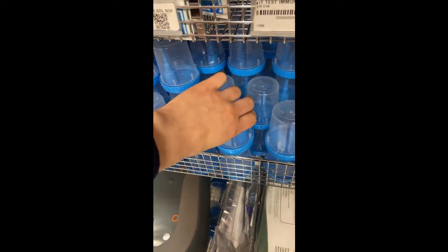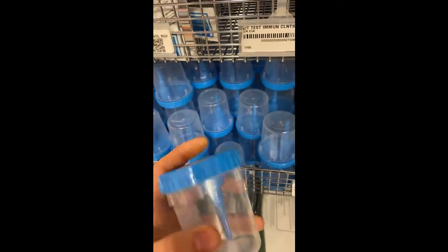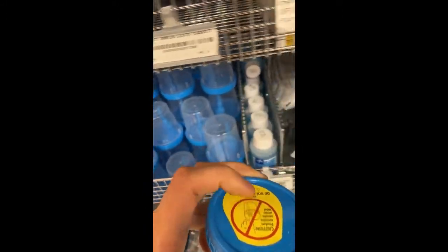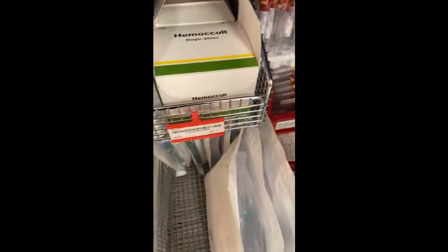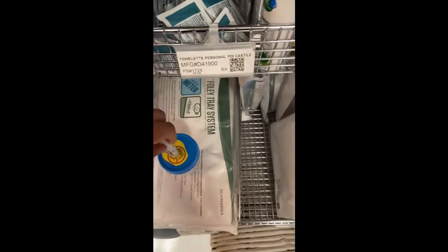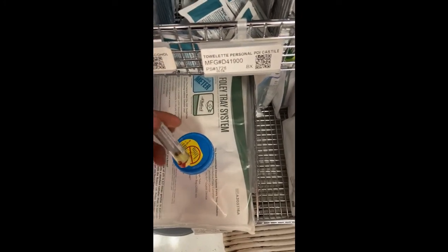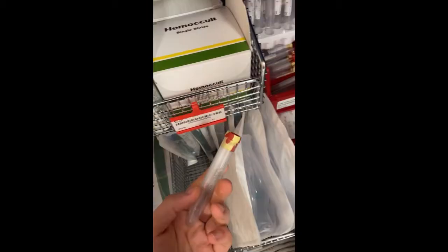Here are urine cups. So you ask the patient to pee in here, you put a label on top, and then you open this, and you would take the urine. So here would be your container. You would put it through here, you would open, and it would just literally come right out over here. So this opens over here. There's like a needle inside. Put it in. The urine comes in here, and here is your sample.